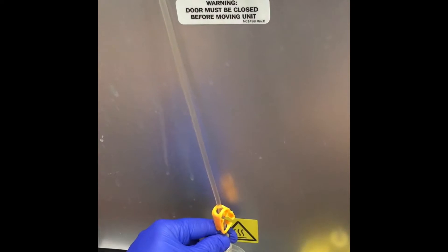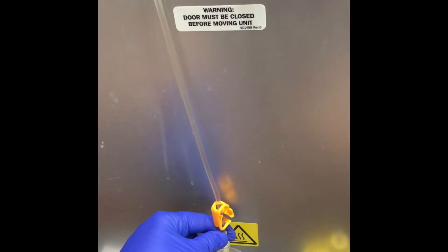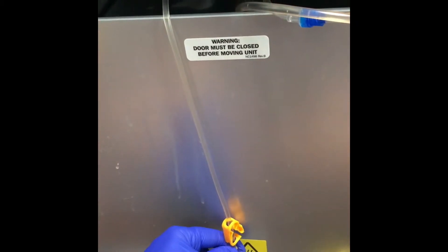It's kind of like checking your hot tub minerals. I have a little strip that I will swirl into this dialysis solution and I'll show you how that's done.